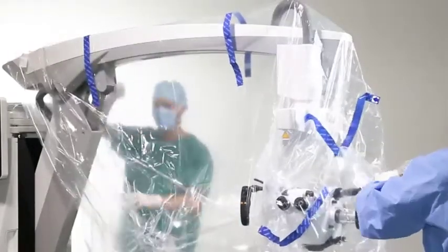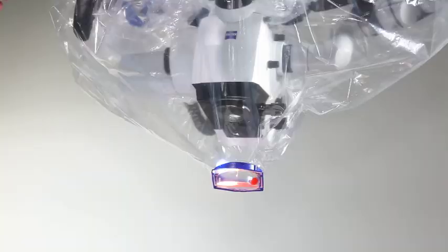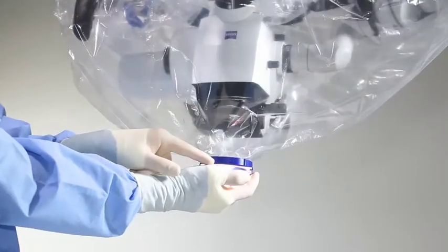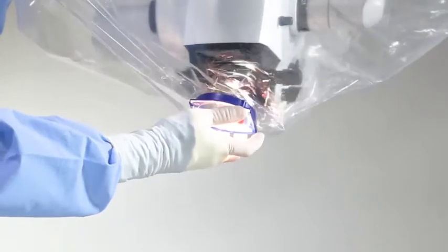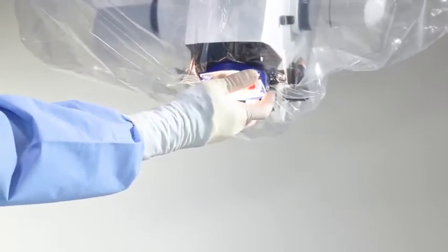With its magnetic configuration, Smart Drape can be easily snapped into the right position. Hold the Vision Guard lens such that the ZEISS text faces you. Remove the excess material and move Vision Guard under the lens. While you're doing this, it snaps into the right position automatically.